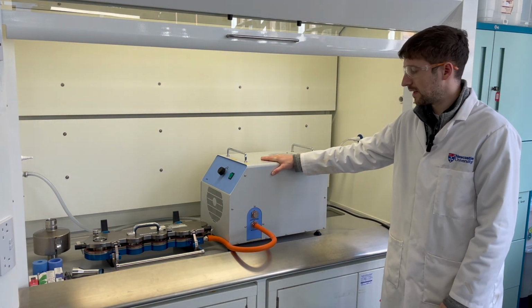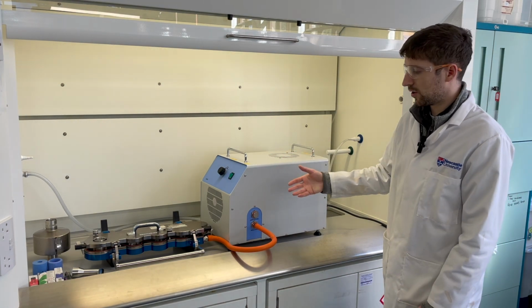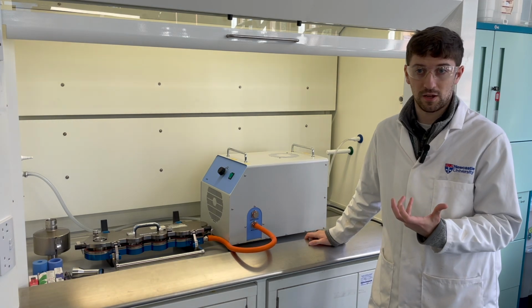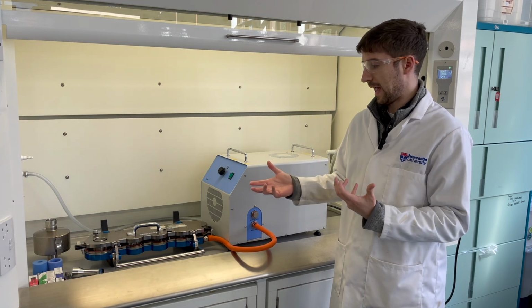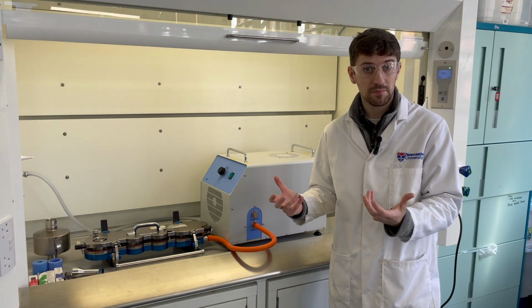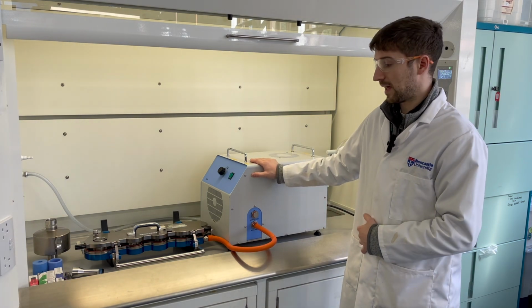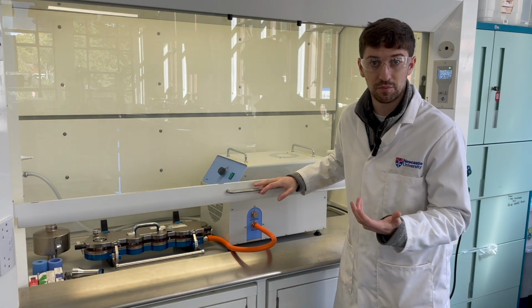And this machine effectively creates negative pressure, right? It's a vacuum, if you like, and all it does is pull air through the mouthpiece, right through the system, okay? Again, mimicking the lung. And you can set this to withdraw air at a pressure similar to how a COPD patient might withdraw air, in a low pressure way, but then you might also be able to set it in a way in which someone with a healthy lung capacity can breathe, okay?